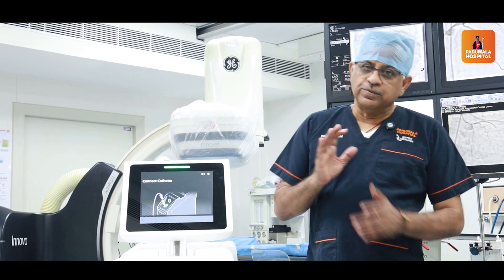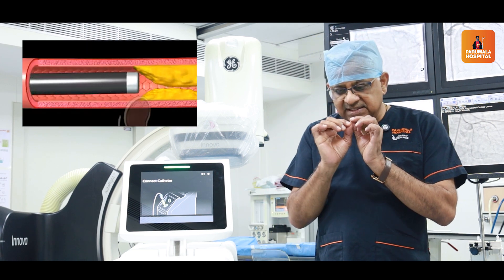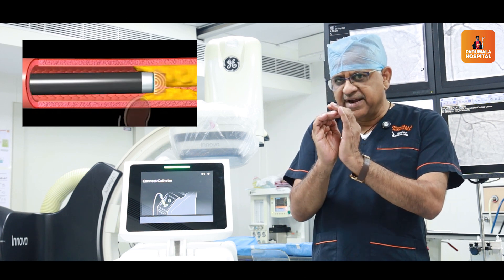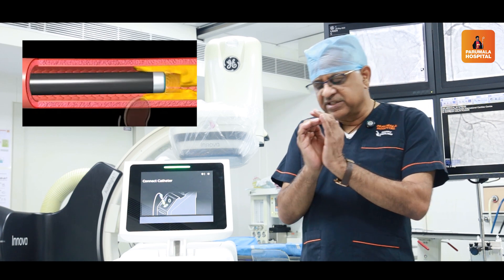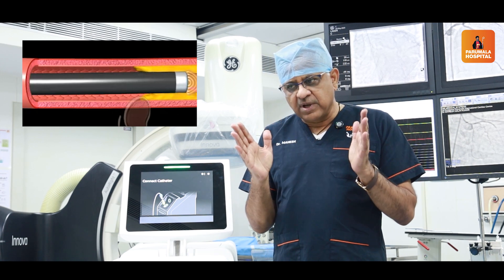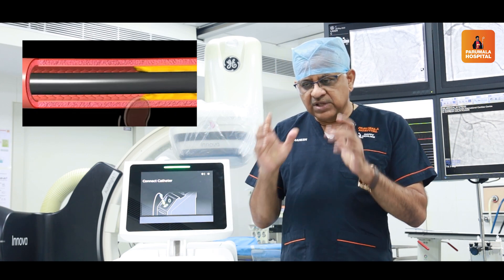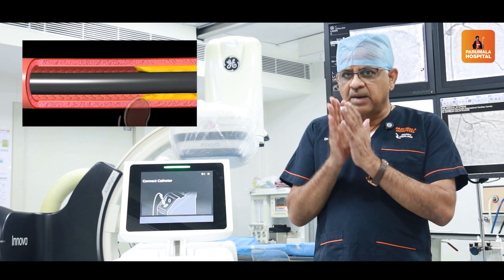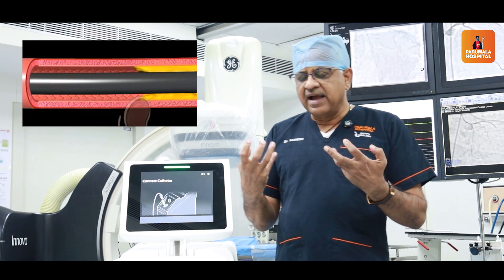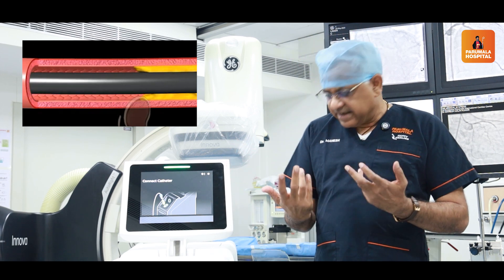Once the photons get emitted from the laser, hit the cells, and multiple photons get emitted and redirected in the frequency and direction we want, they first produce a photochemical reaction. In the photochemical reaction, they break the carbon bonds of the fibrous tissue that is present. The chemical reaction damages these carbon bonds, as a result of which the strength and backbone of the fibrous tissue gets damaged.